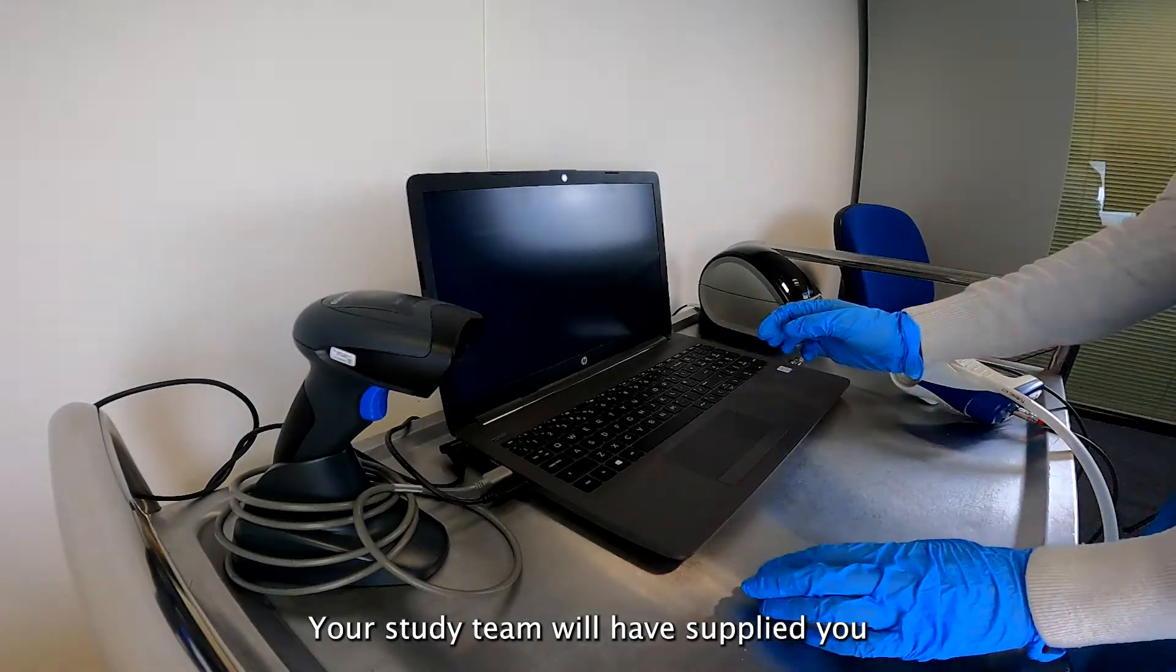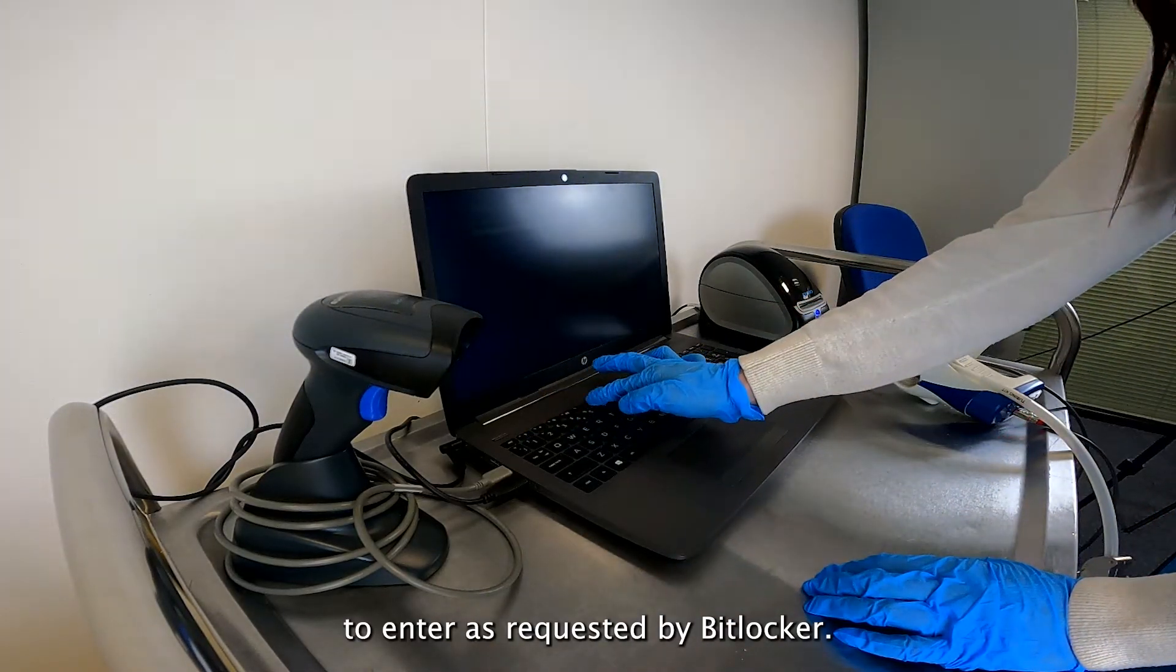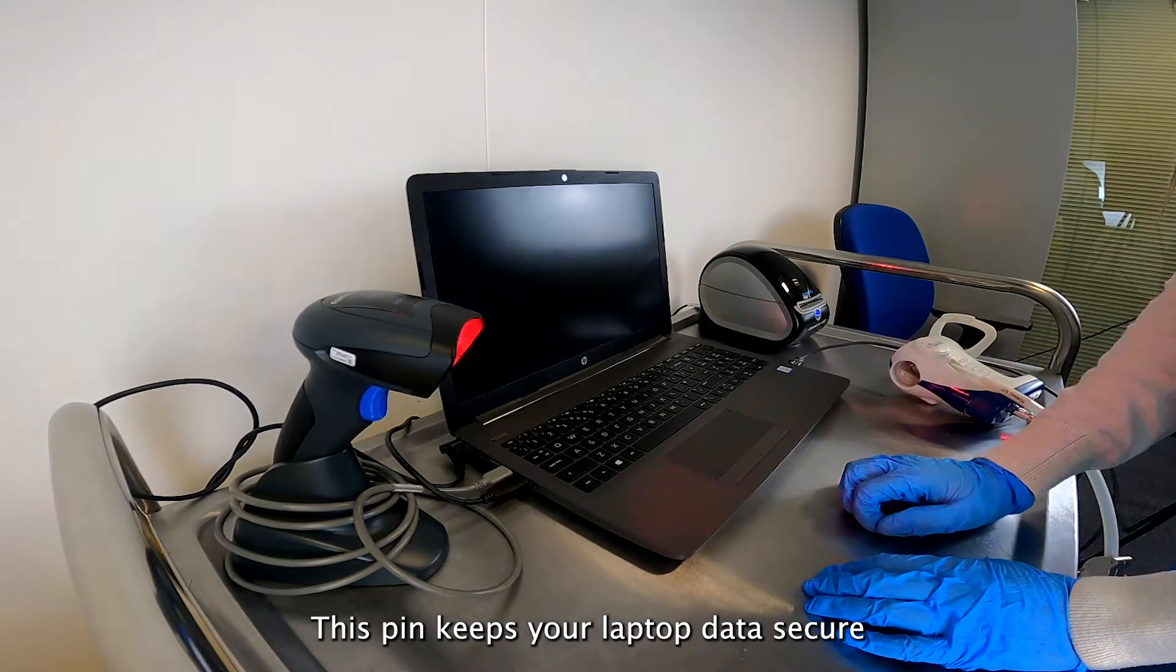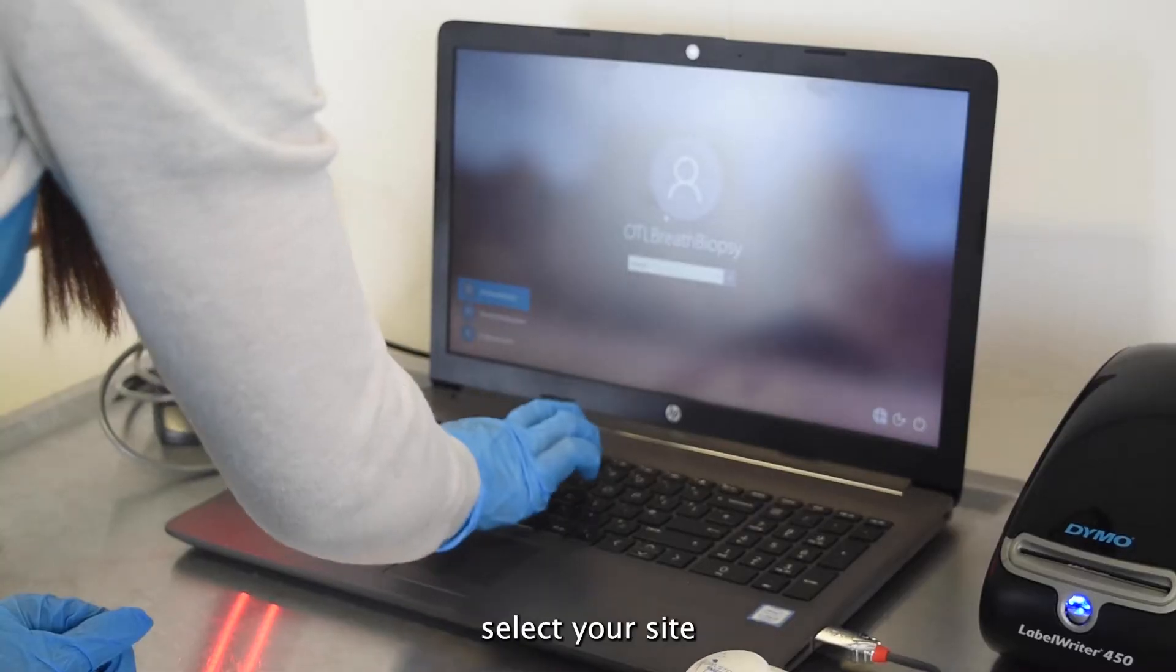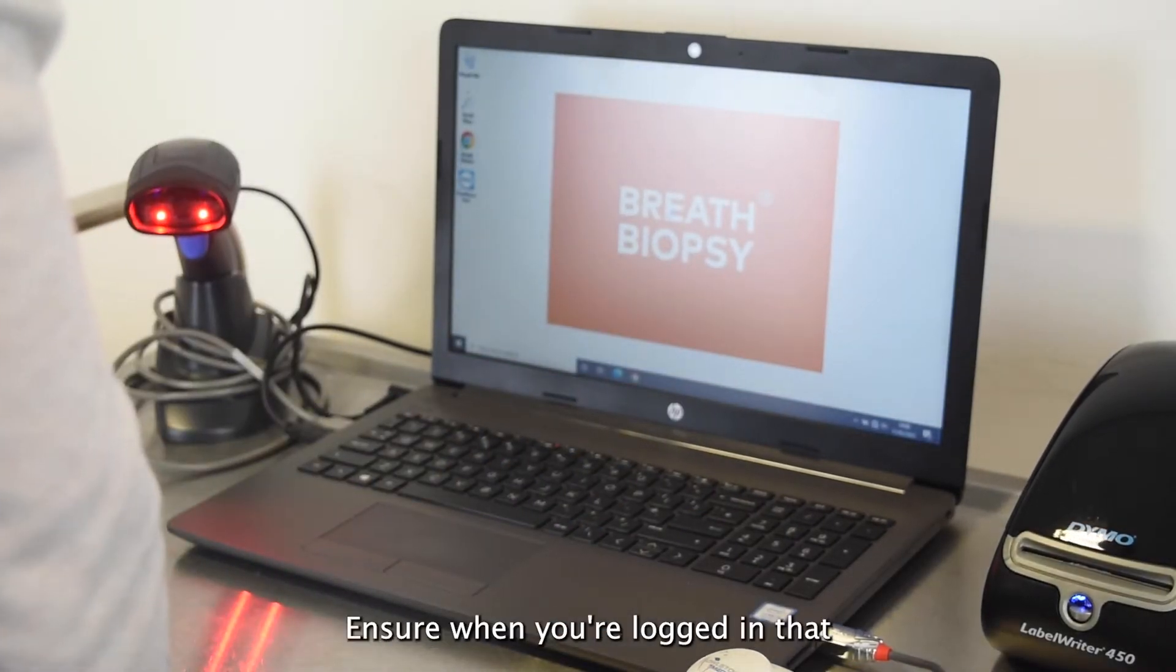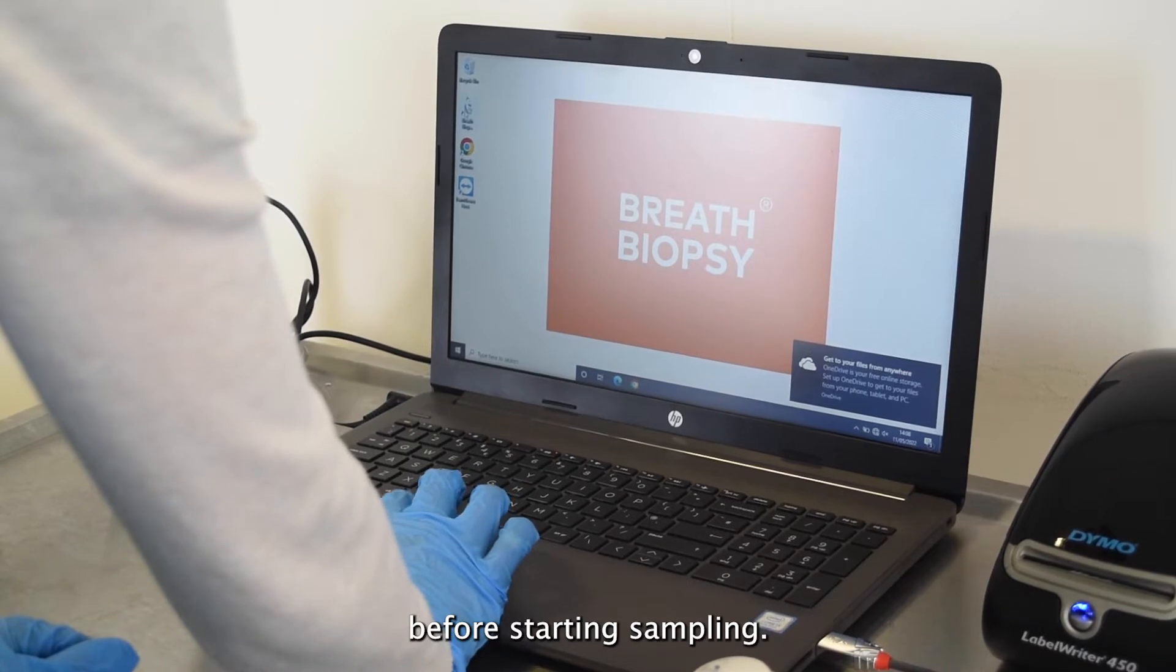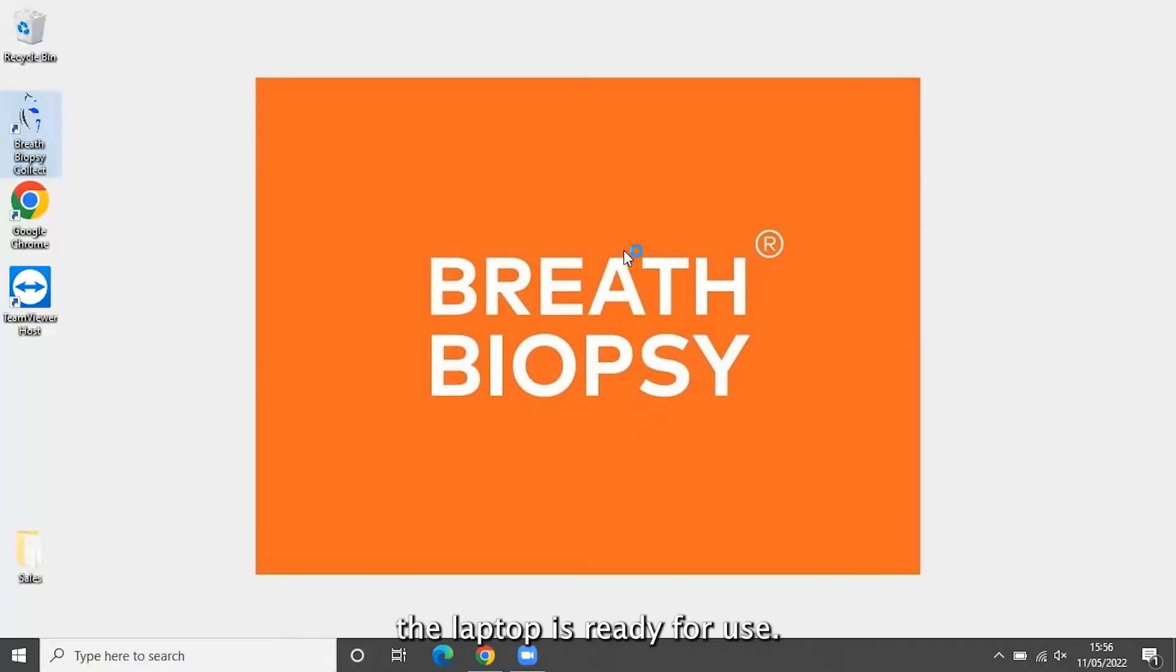Your study team will have supplied you with a six digit pin to enter as requested by BitLocker. This pin keeps your laptop data secure and should be kept safe. When prompted, select your site-specific username and enter the password provided to you. Ensure when you're logged in that you're connected to the local Wi-Fi before starting sampling. Once this is all done, the laptop is ready for use.